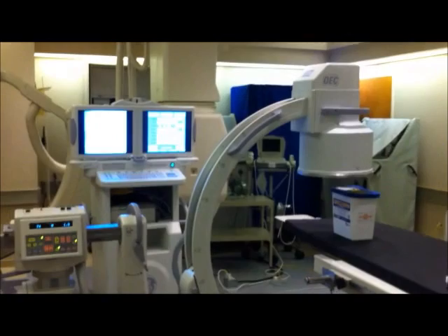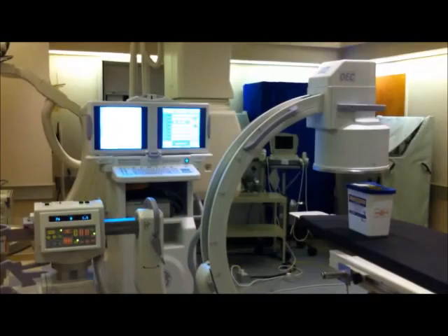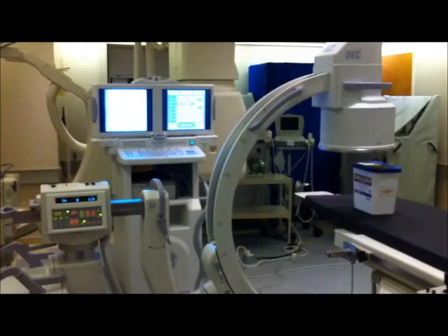Hi there, my name is Calvin and the purpose of this video today is just to orient you on the use of this OEC 9900 Elite C-Arm here. I'll give you the basic overview — basically how to use a C-Arm in a quick and short video.